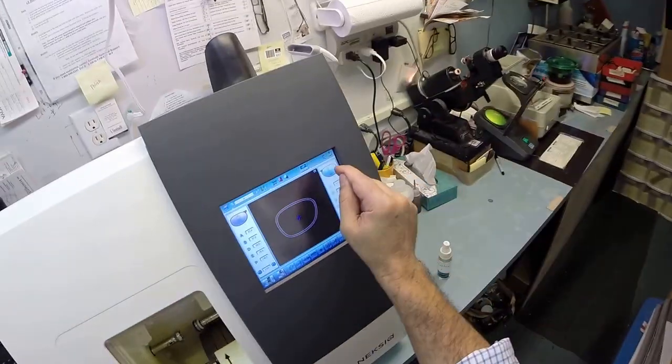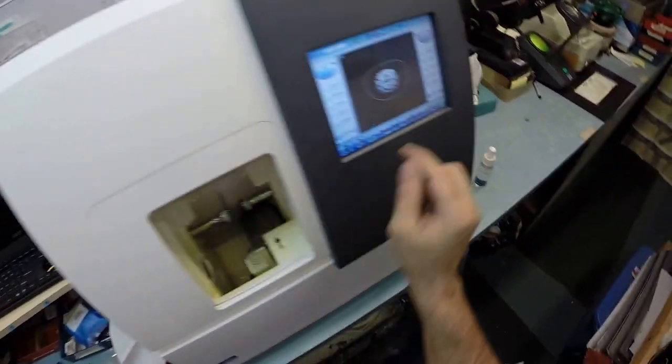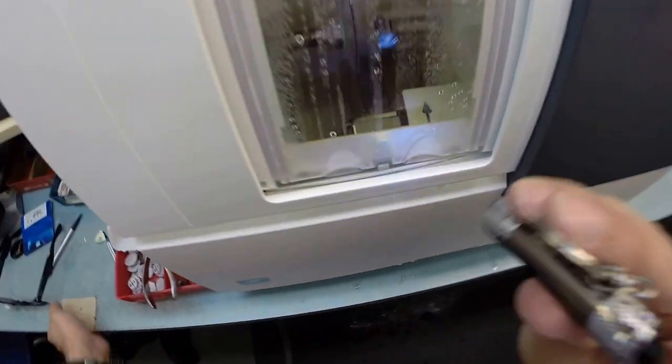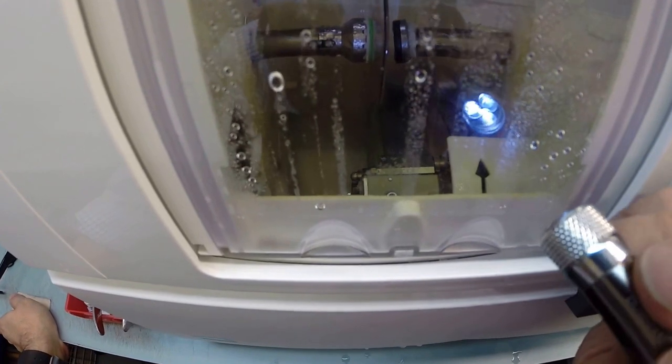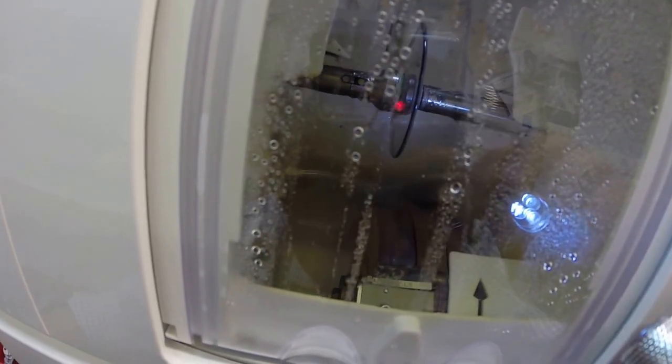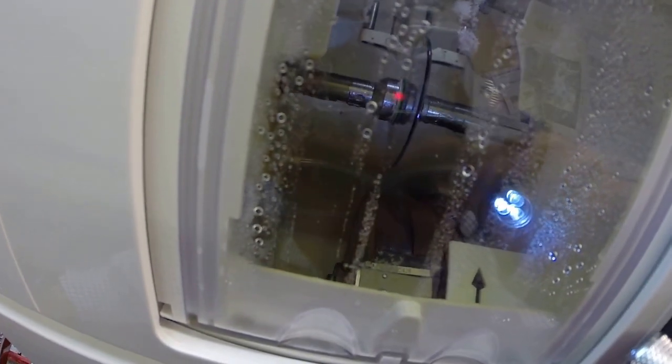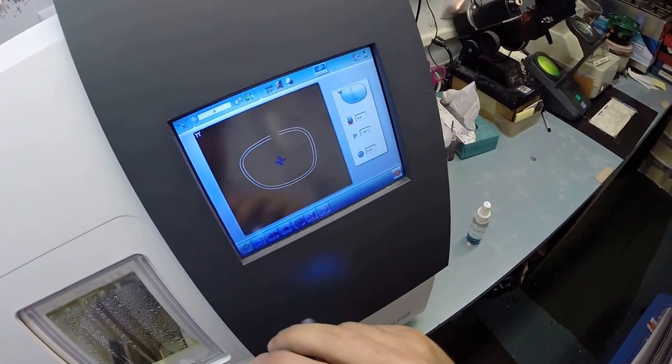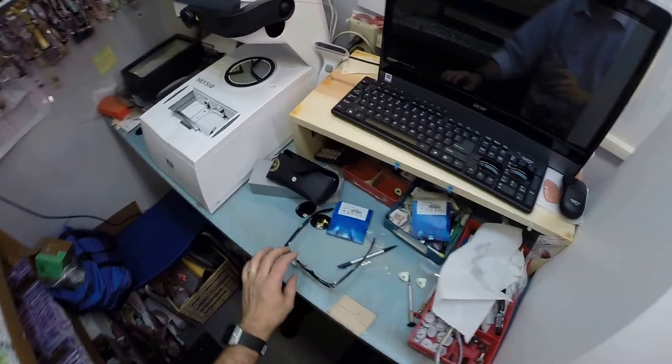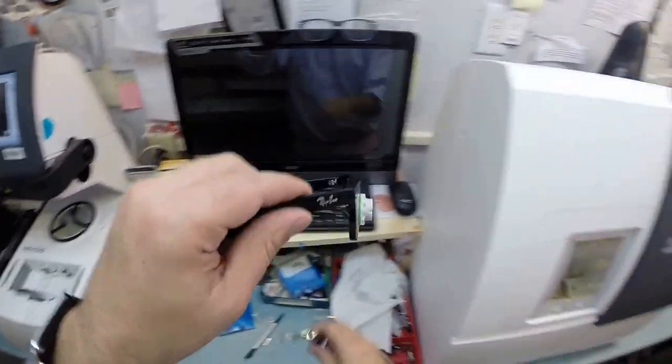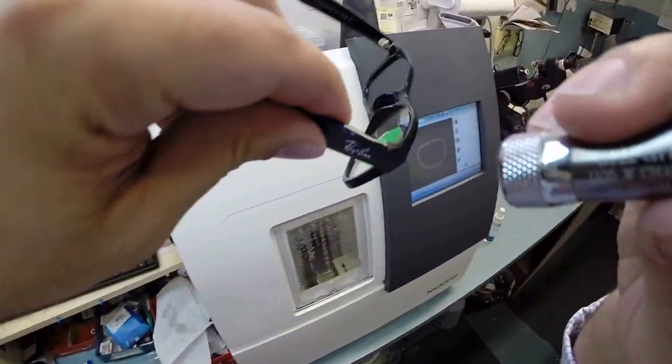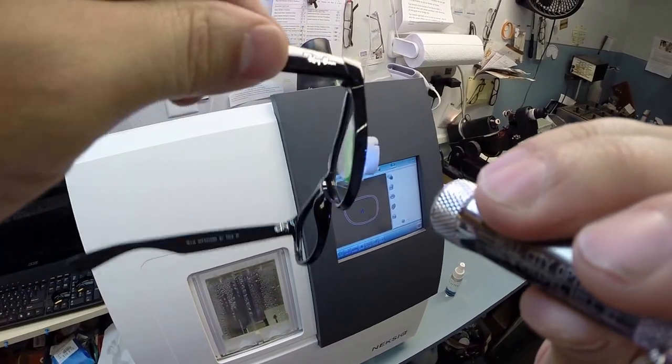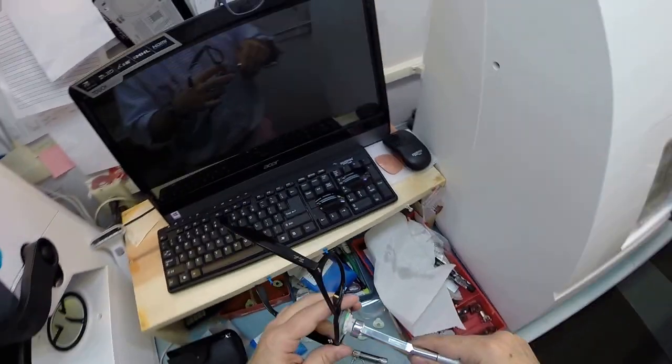I'm going to do the same thing now for the left lens. I'm going to flip that over to L, put that into the chuck, and hit start. Just like before, the clamp's going to shut, the lens is going to move up, and it's going to be traced by the two white styluses again to make sure the left lens is large enough to fit into the frame, which it is, but again also measuring the thickness of the lens at every point to know exactly where to place the bevel so the lens fits inside the frame with no edge thickness.